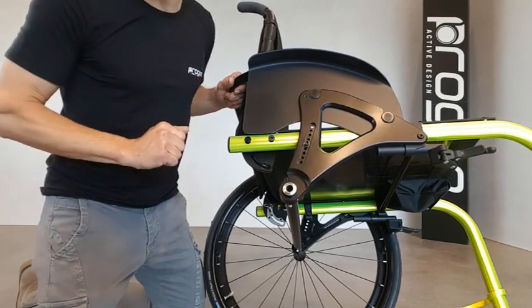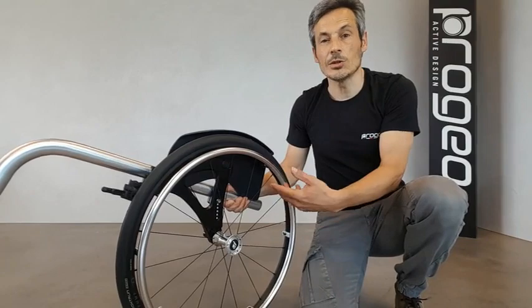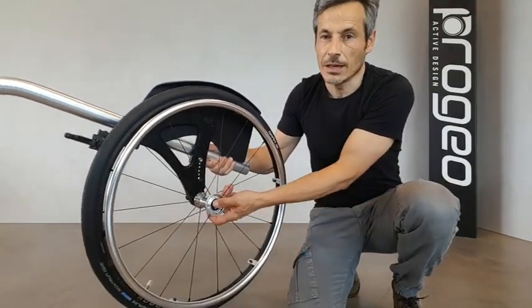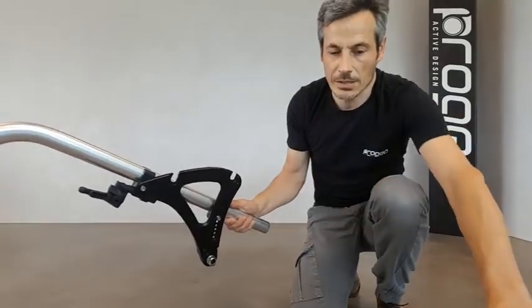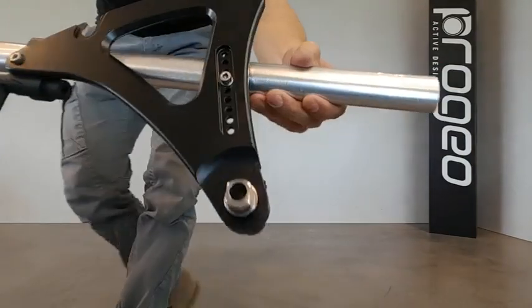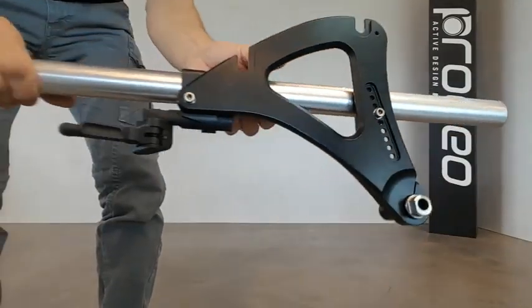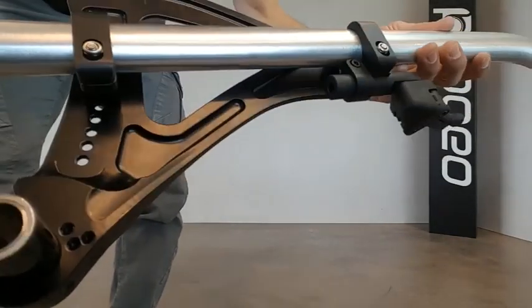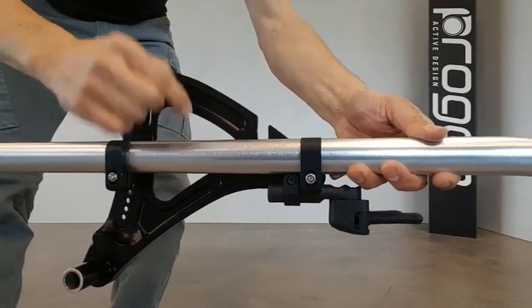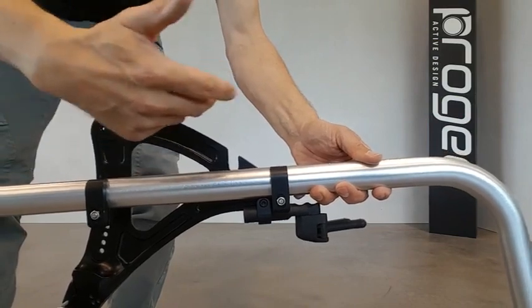Let's have a deeper look at this plate. We use just a section of the wheelchair in order to have a better look at the parts involved. I remove the rear wheel and the mudguards. Now we can appreciate the machining of this aluminum plate, which is designed to offer maximum resistance with minimum weight. We can see the two clamps fixing the frame that are involved in the adjustment of the point of balance.